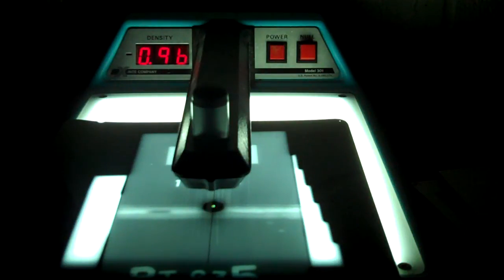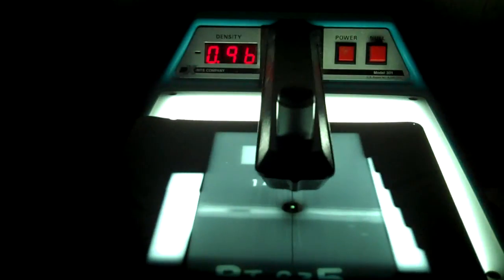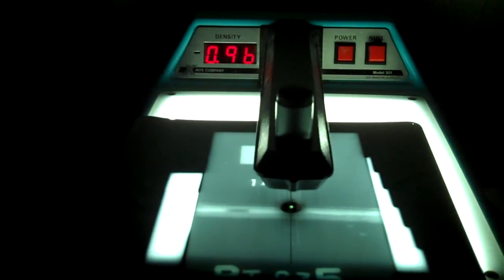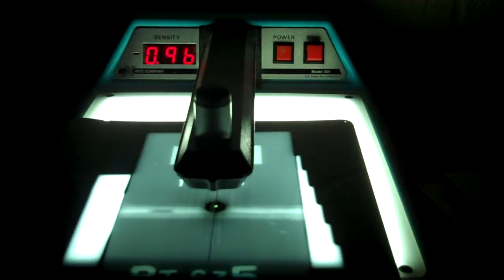Last video of the week here, we're going to put you right in the driver's seat. We've developed those two films, one automatic, one manual. Whoops, I just kicked you there. Sorry about that.